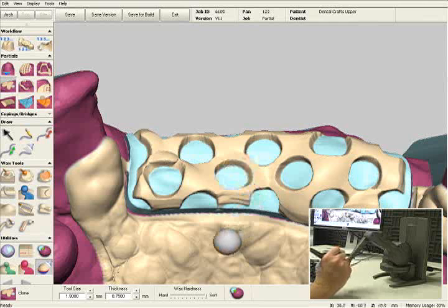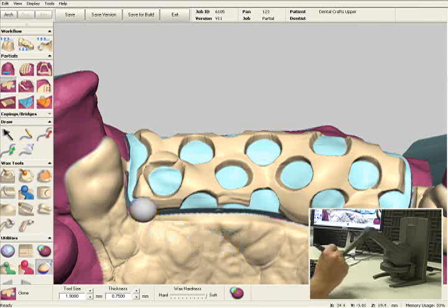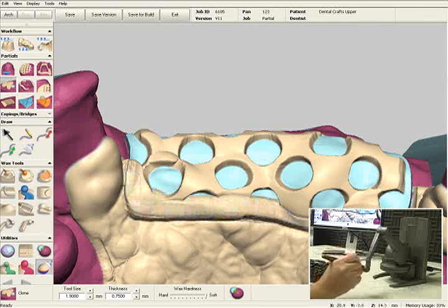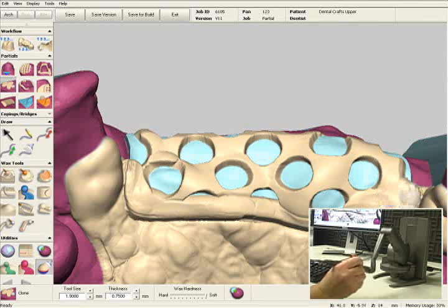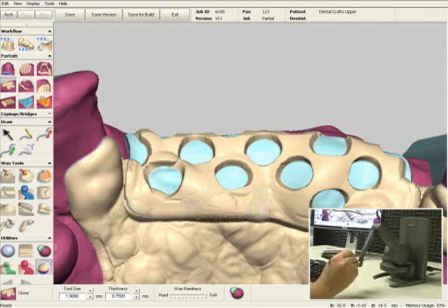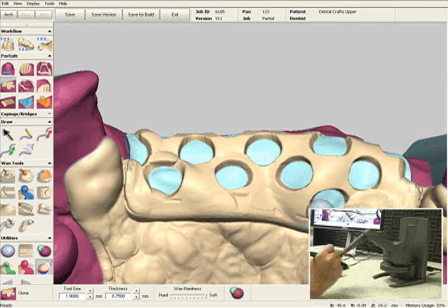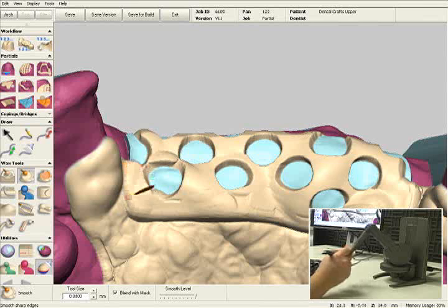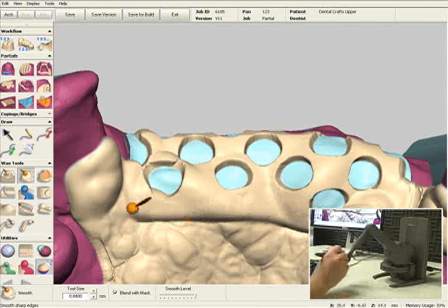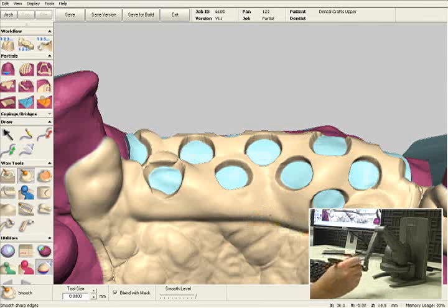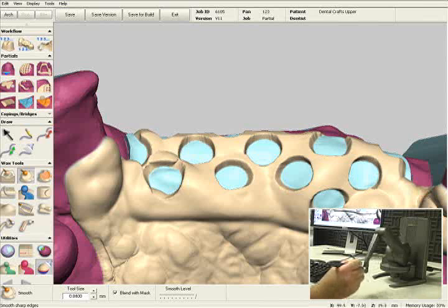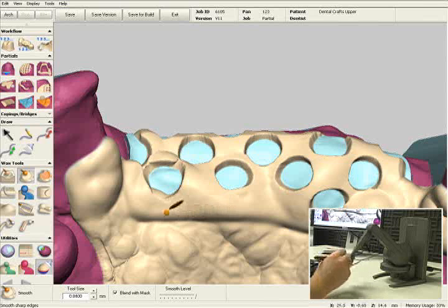I'm going to remove that wax I filled in my retention area in the mesh, and I'm going to connect the anterior mesh to my major connector. I'll fill in some of these holes here, then select my smooth tool and blend that in. The smooth tool is very similar to using an alcohol torch — it's very simple and easy to smooth the wax out in areas that may have had a couple of sharp corners.